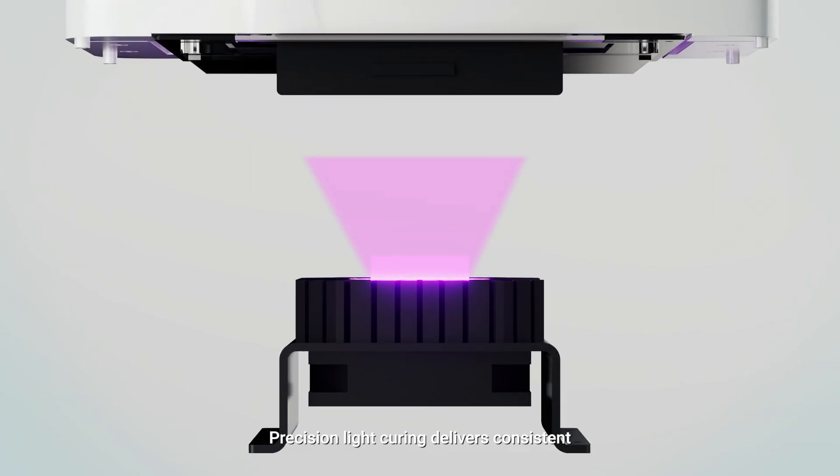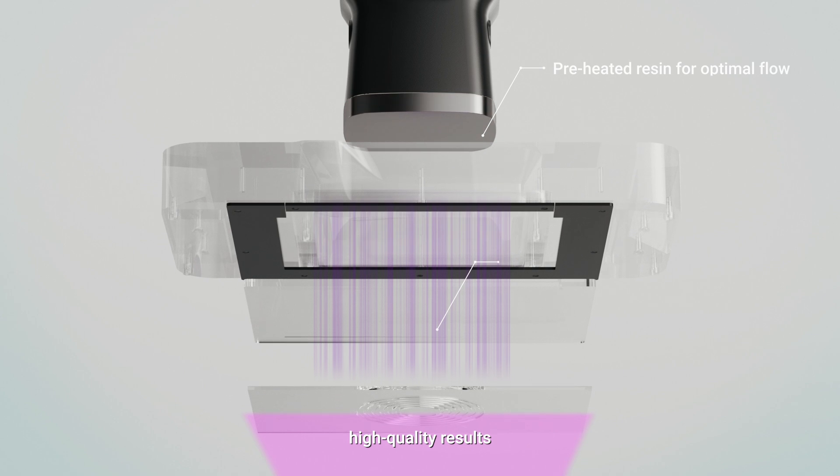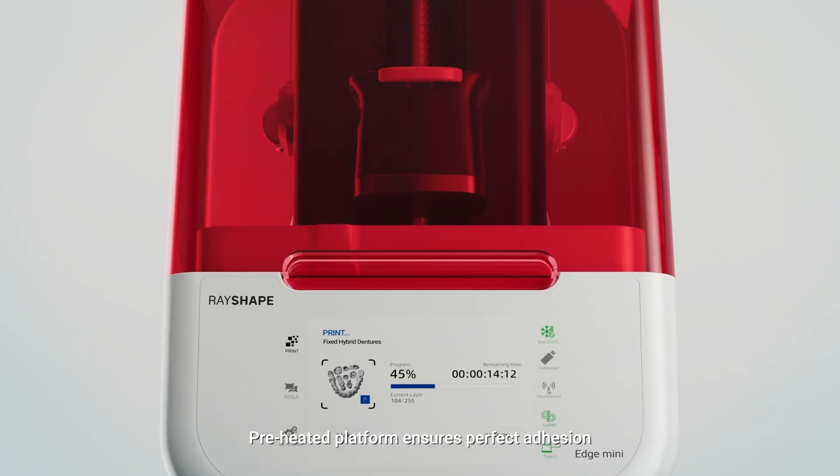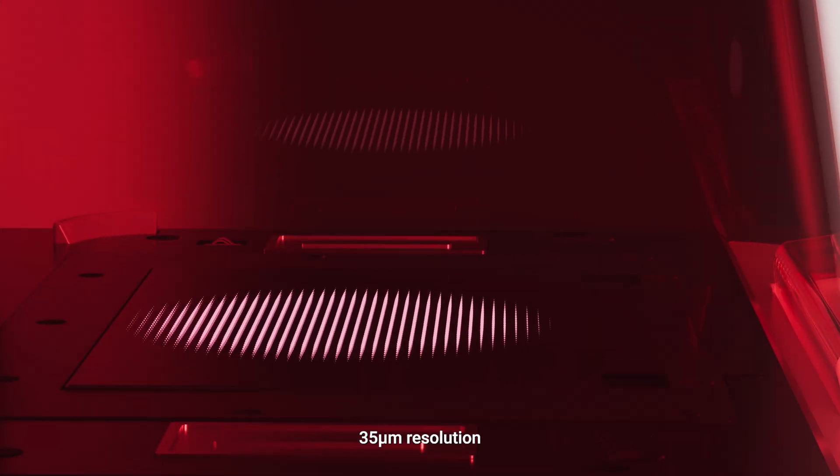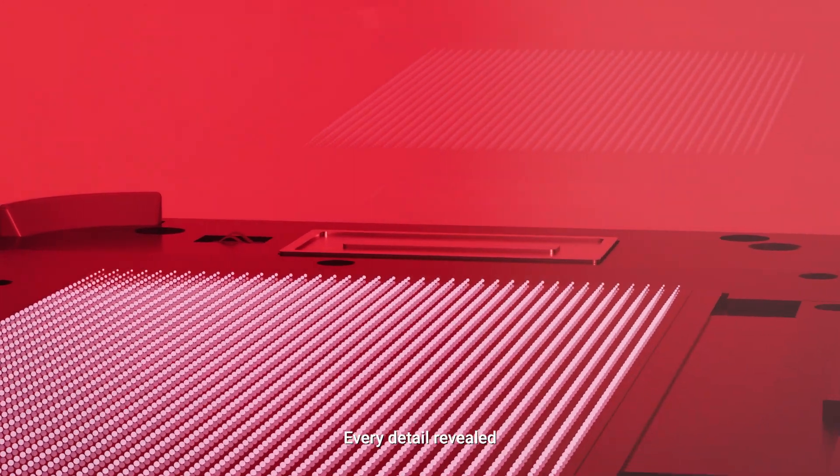Precision light curing delivers consistent, high-quality results. Preheated platform ensures perfect adhesion. 35 micrometers resolution. Every detail revealed.